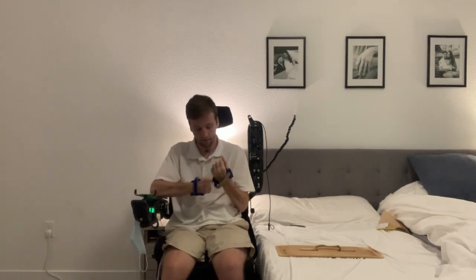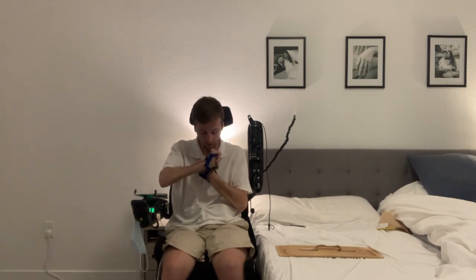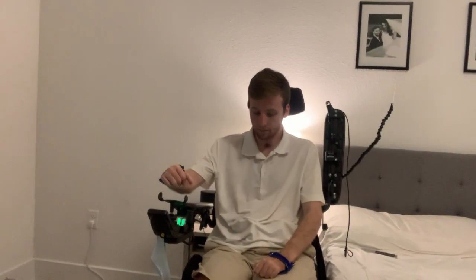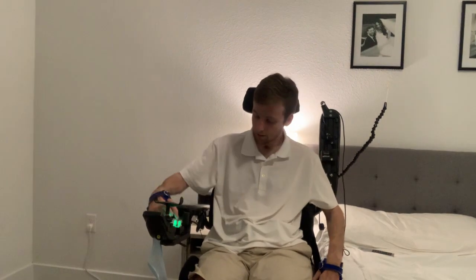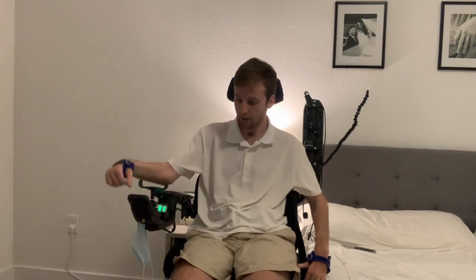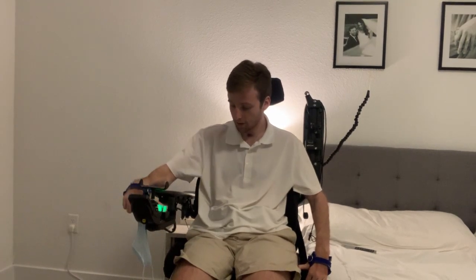You can move the camera closer so I can show how I get the board under. It's still a little bit too tall — my chair is also fancy and goes up and down, which is super helpful as well.